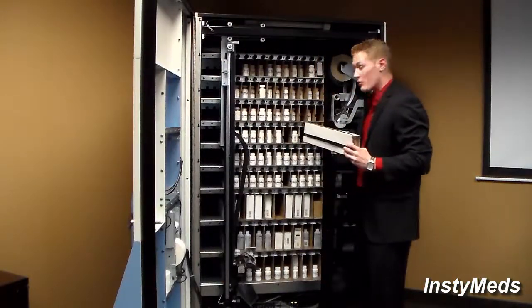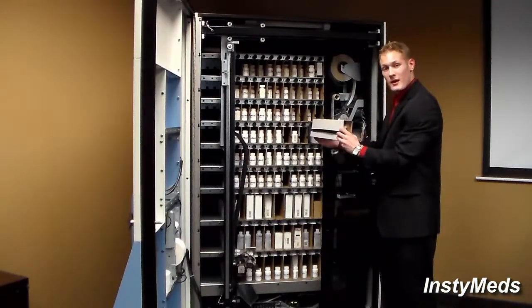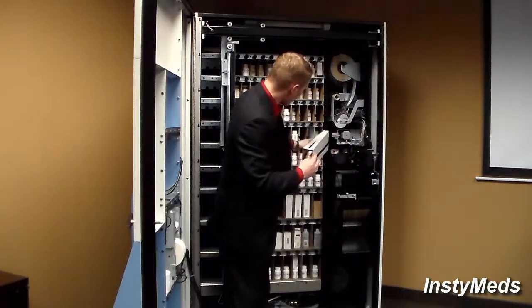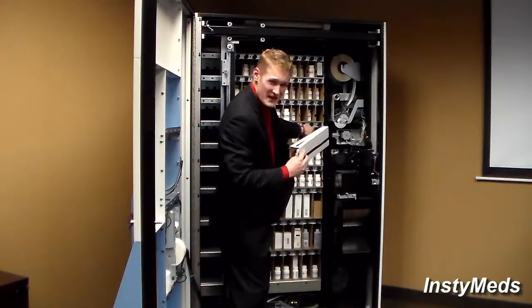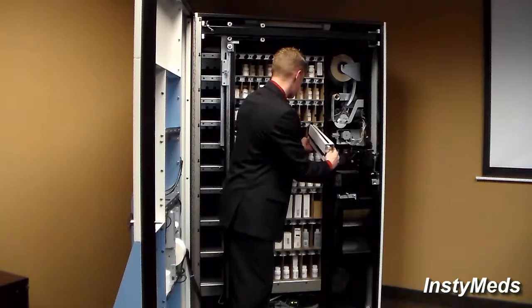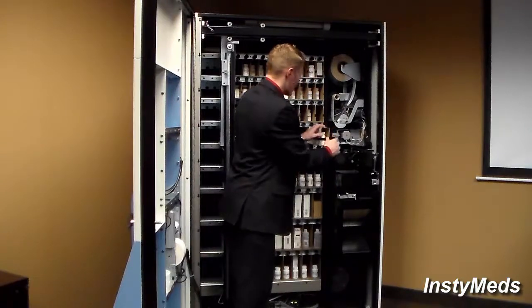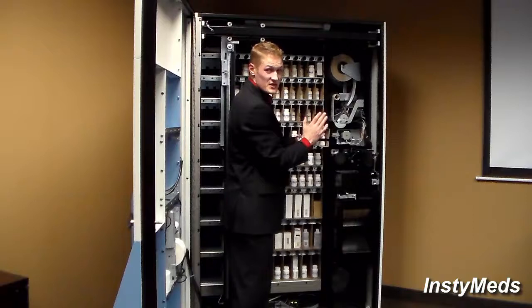So after I already removed a magazine from this slot, I will enter this medication in. So what I will do is there is a metal, almost knob-like, and I will make sure that the cardboard magazine goes on top of that metal. That way, once I push it in, when it's all the way in, it will not cover up the label which needs to be read.